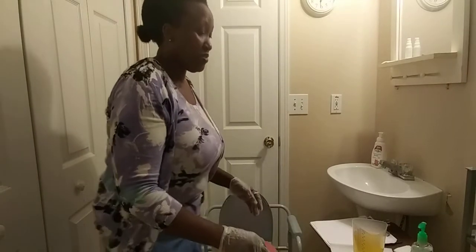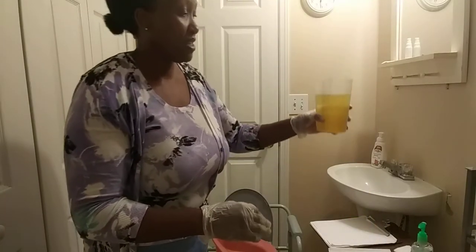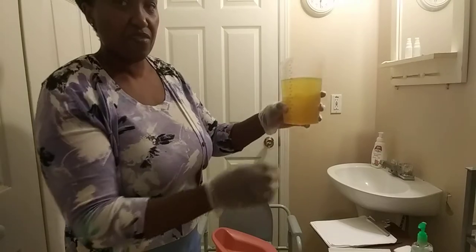Place the container on a flat surface and read the urine at eye level. You want to make sure you are reading at eye level. I have 650 ml. You must check on a flat surface at eye level — I have 650.